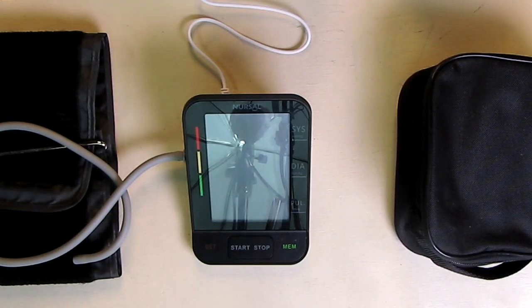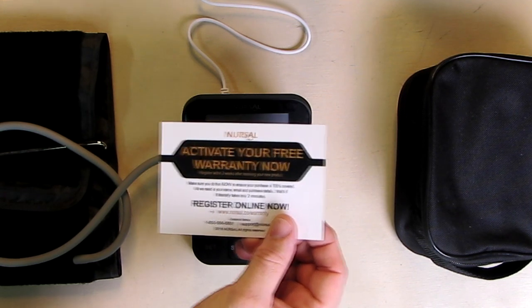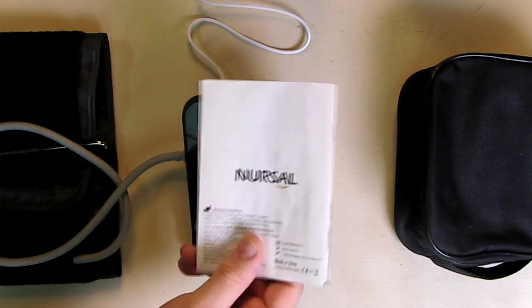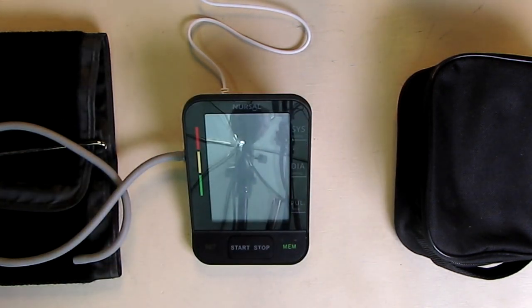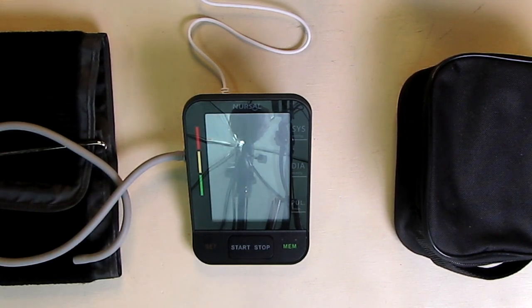The company also provides a two-year warranty. There is a warranty activation card to tell you where to go for that. It includes a very nicely written instruction manual on how to operate the device. It's easy to use.